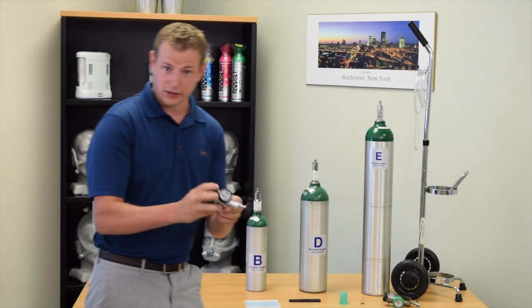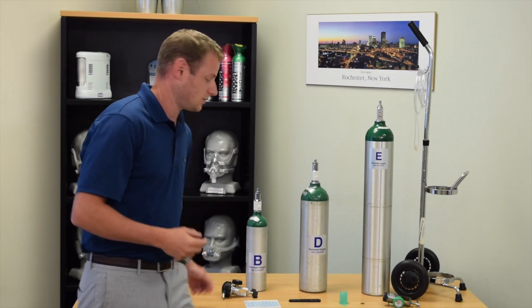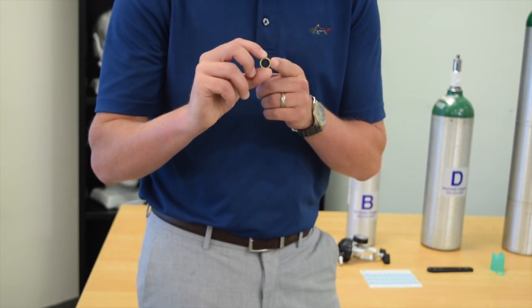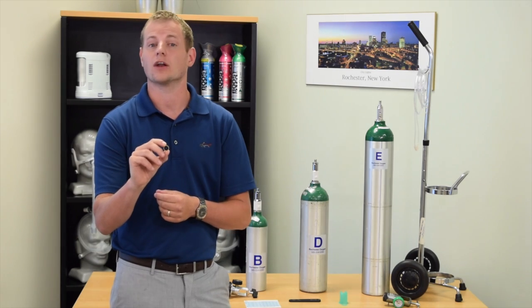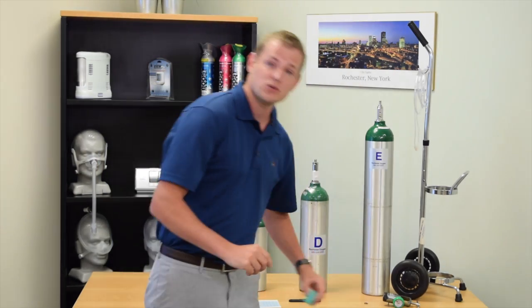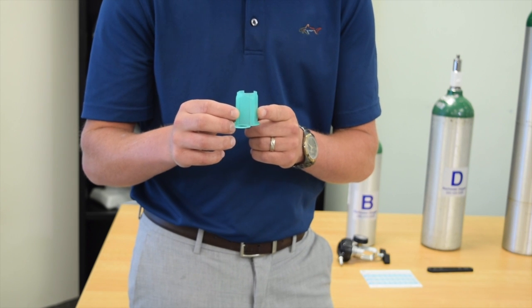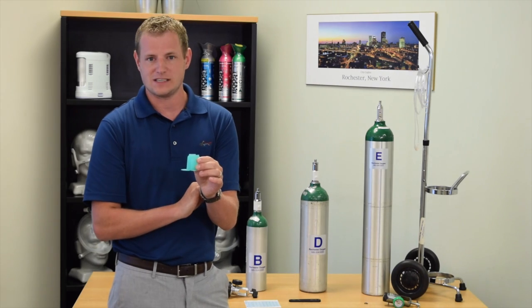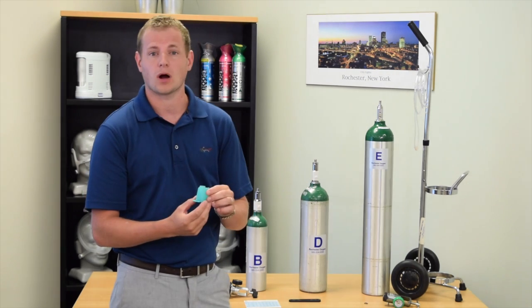Outside of your tank regulators, there are a few other pieces of equipment that will come with your oxygen. A small copper washer will sit inside of your regulator to seal off between the tank and the regulator itself. All full and new tanks will come with a small plastic cap with a small tab that you can pull on for easy removal or a piece of plastic wrap around the neck.